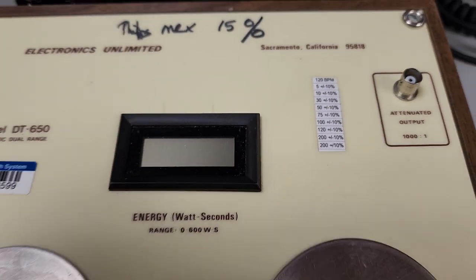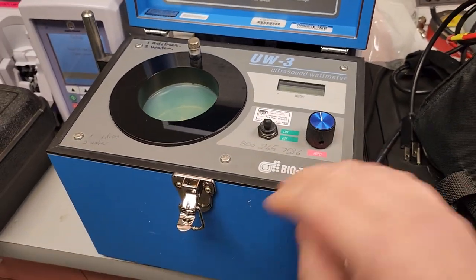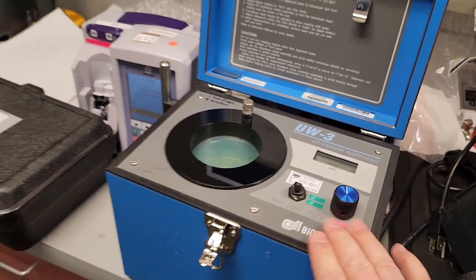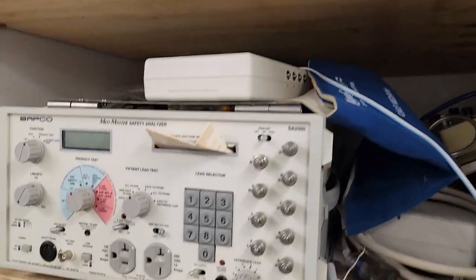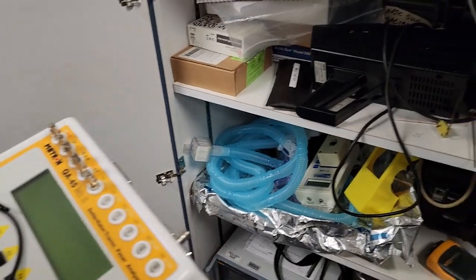It's a defib analyzer — how crazy is this! I have definitely used this before, although I used to have this one in a wood case. I'm pretty sure this one used to come in a wood case.